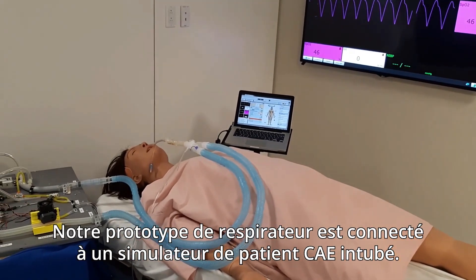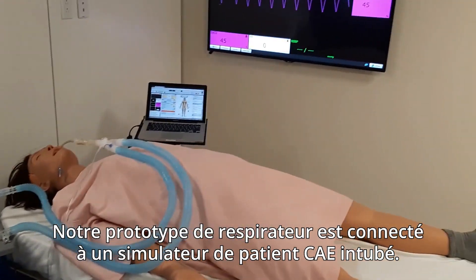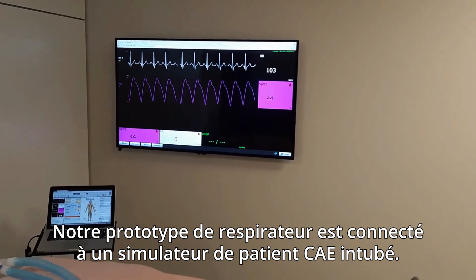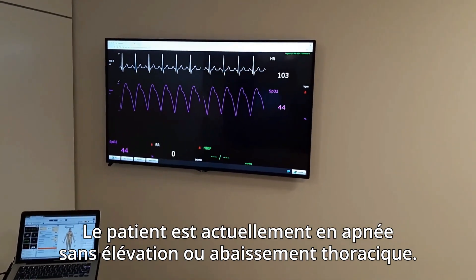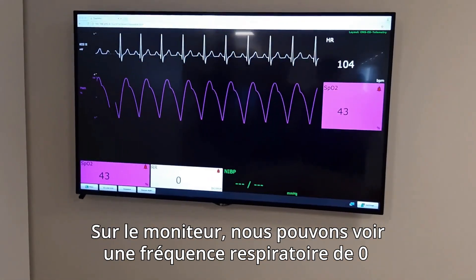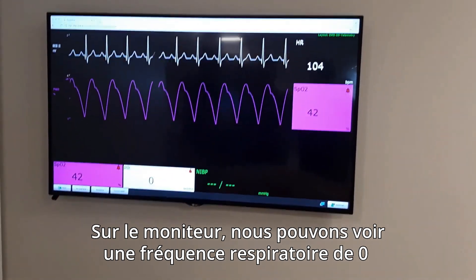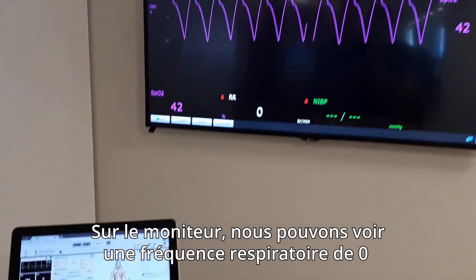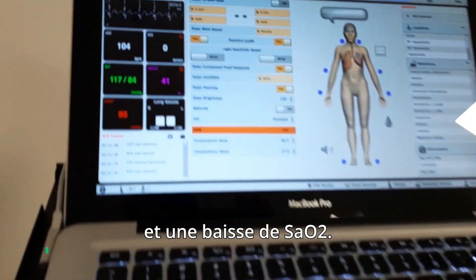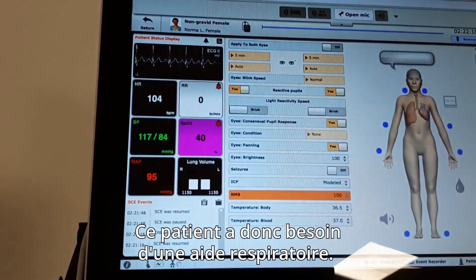Our prototype ventilator is connected to an intubated CAE patient simulator. The patient is currently in apnea with no chest rise or fall. On the patient monitor, we can see a respiratory rate of zero and a dropping SpO2, so this patient definitely needs ventilation support.